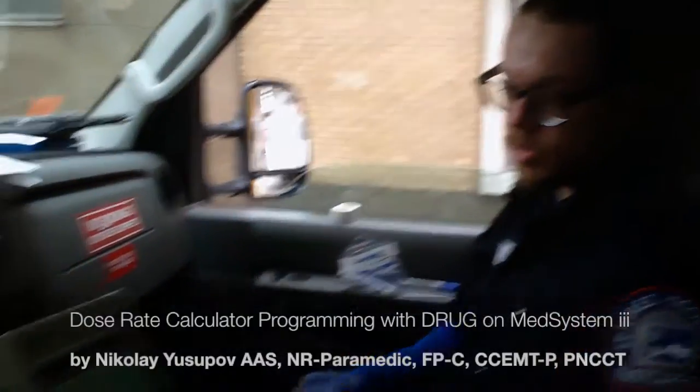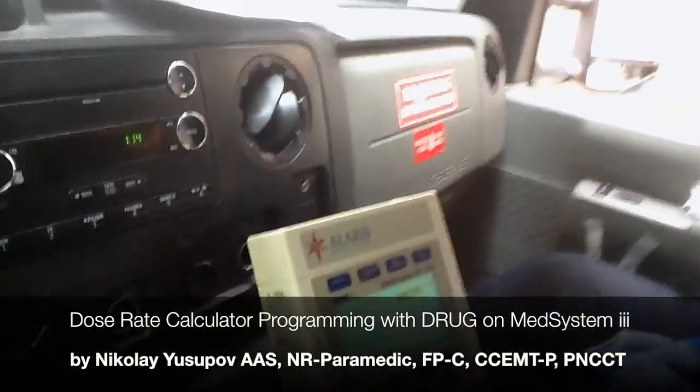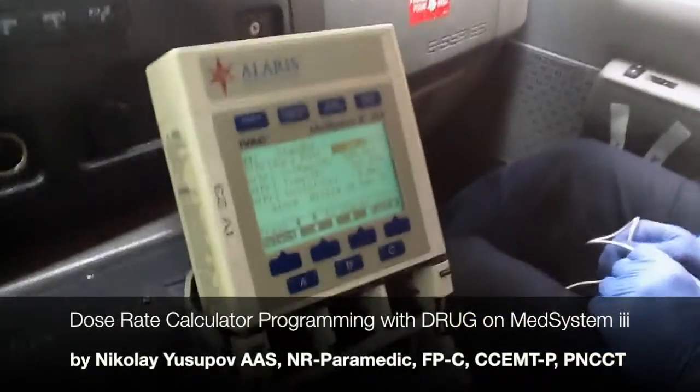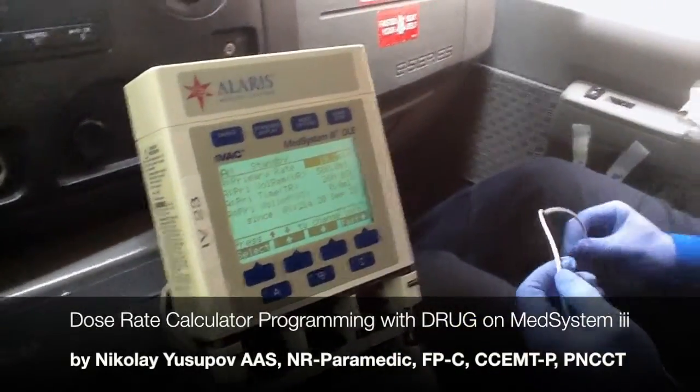Hello, my name is Nikola Yusupov. I'm a paramedic in New York City and in this video I want to show you the specifics of drug dose calculations on the Alaris MedSystem 3 pump.